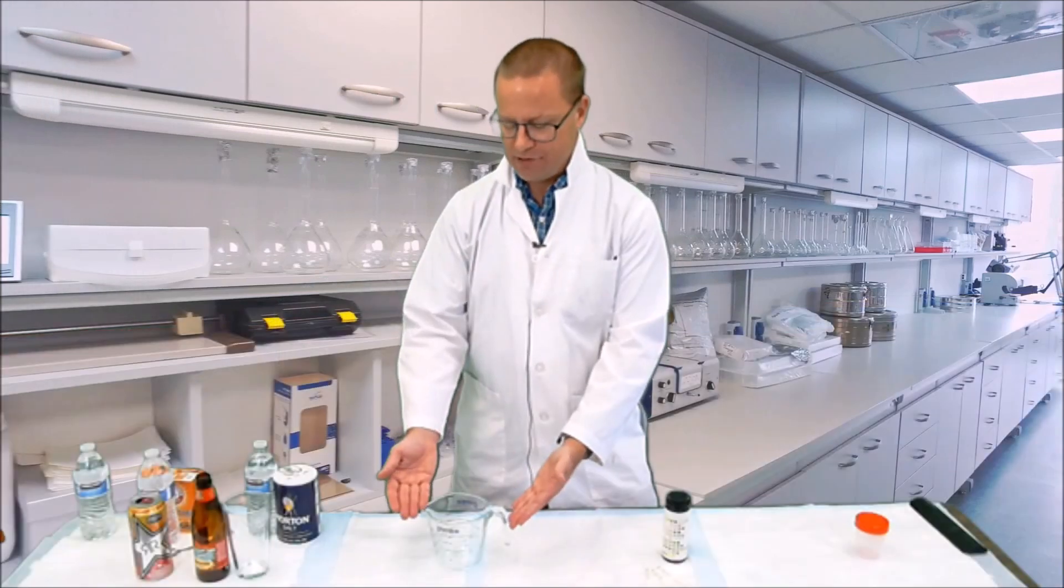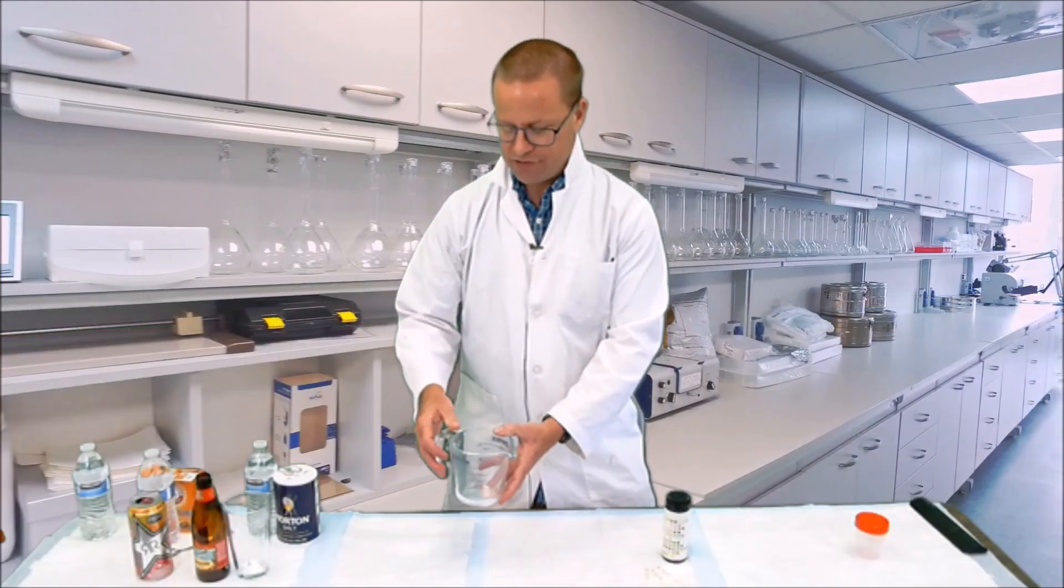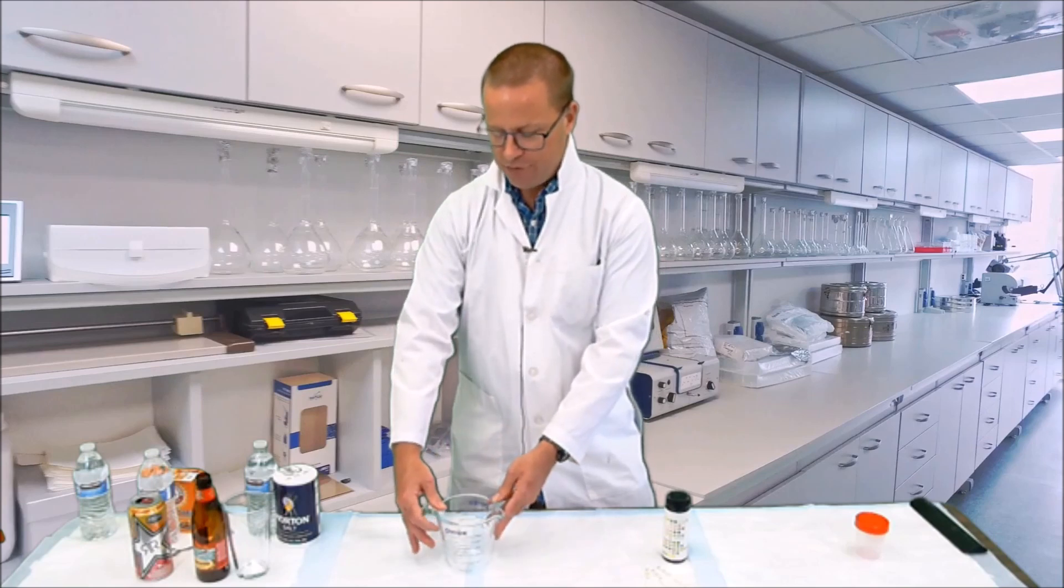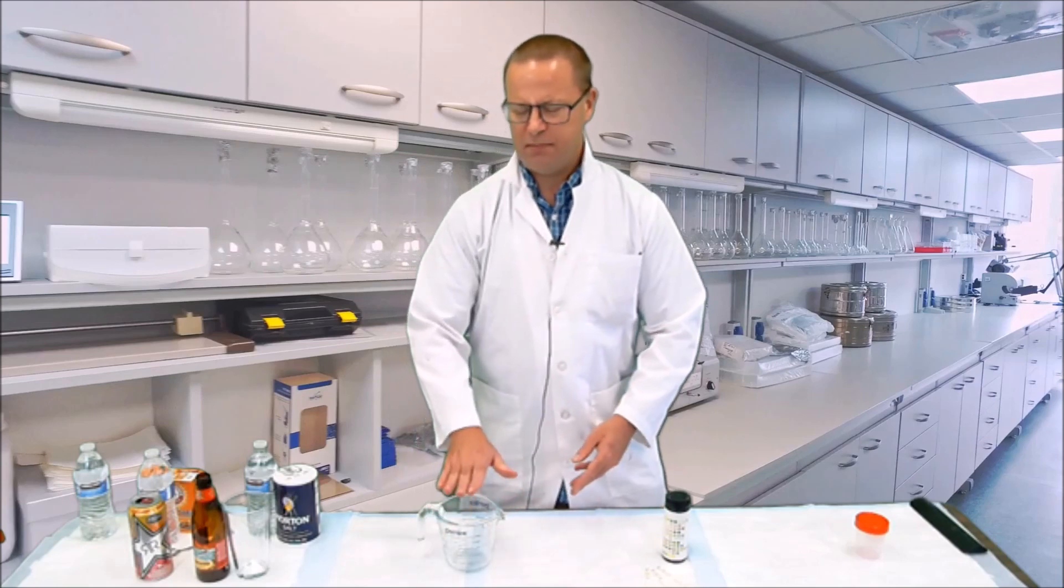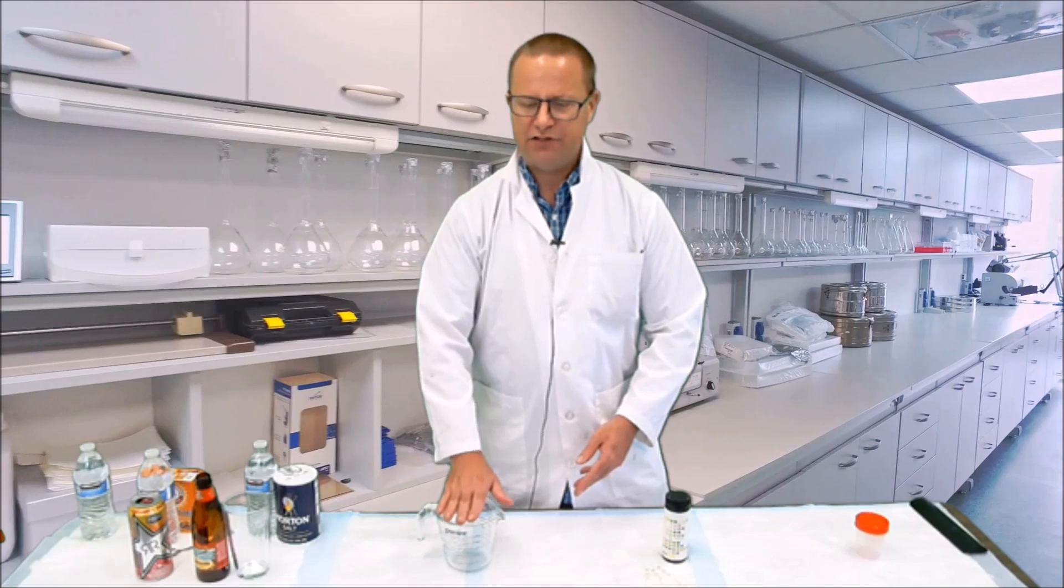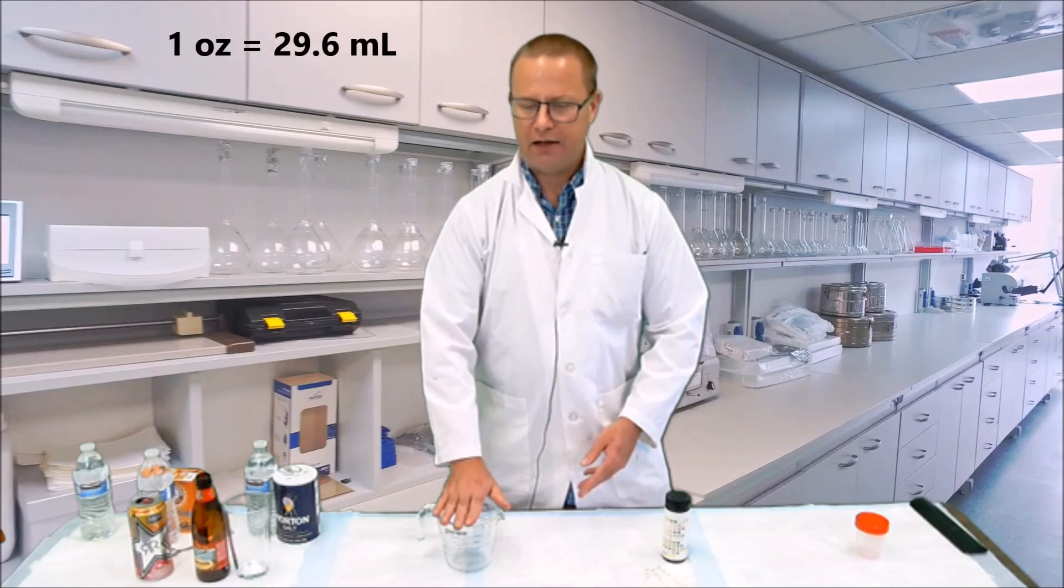You will also need a measuring cup, something that hopefully measures in milliliters. If you don't have anything that measures in milliliters, if it measures in ounces, that's fine, just take 30 and multiply it by the ounces.